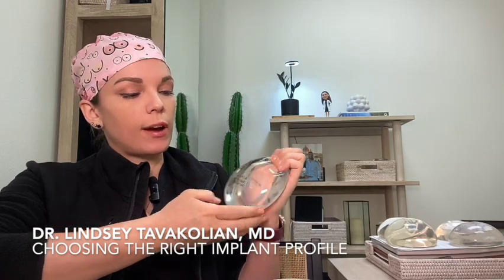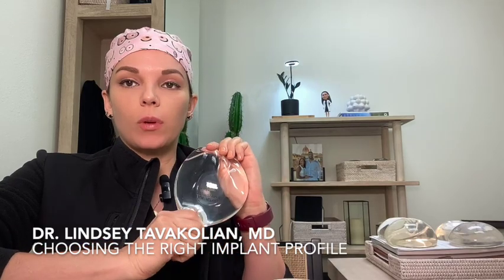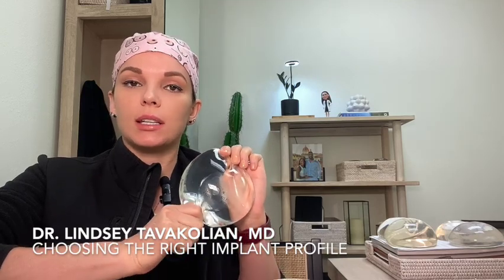It's not a good way to choose an implant based on how a particular type looks in somebody else. I have seen cases where a pretty average implant — moderate profile, 325cc — would fit a lot of women, but in some women it can look very big, very full, and very augmented because of the qualities of their existing breasts. In other women that same implant would get lost and not even fill out their breasts. And in others it would fill out nicely but look really subtle and natural.